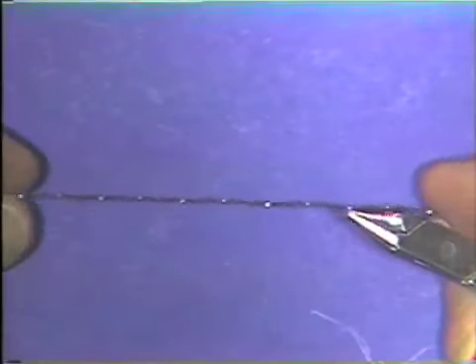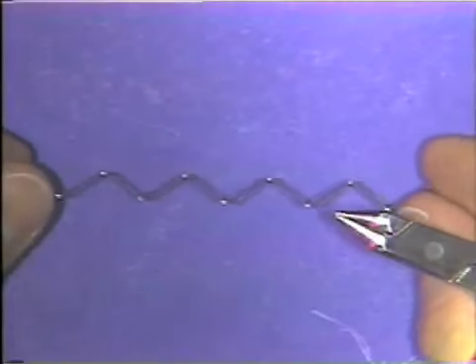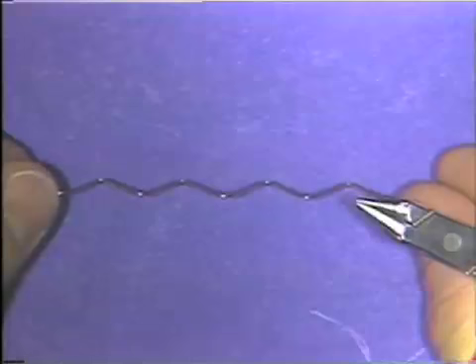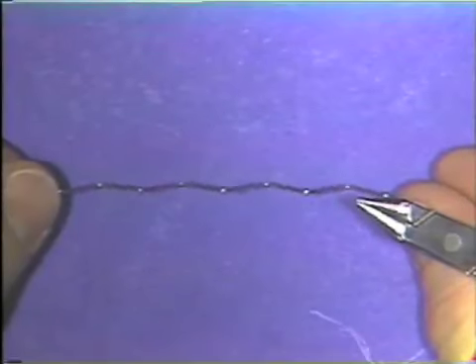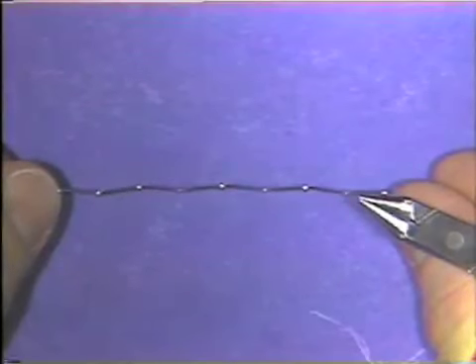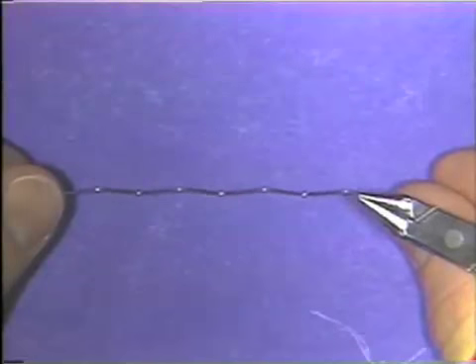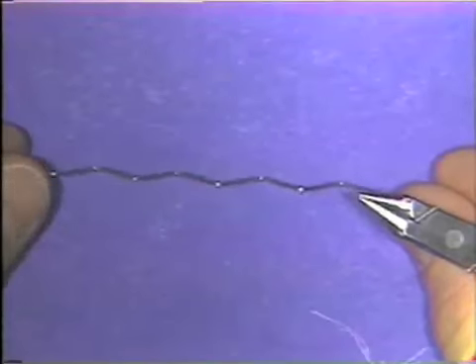Now, ideally, as you're bending a wire, such as this example, the bends are made with control of the plane in space in mind, by keeping the wire at exactly 90 degrees to the long axis of the beaks of the plier as you're making each bend.